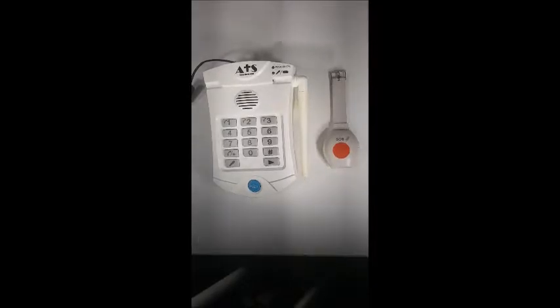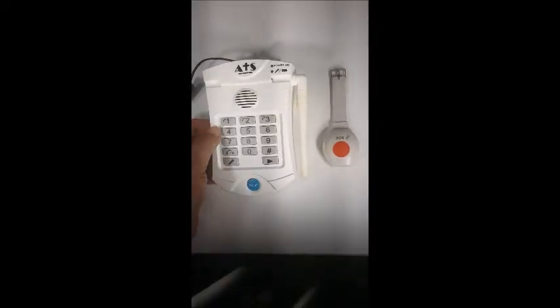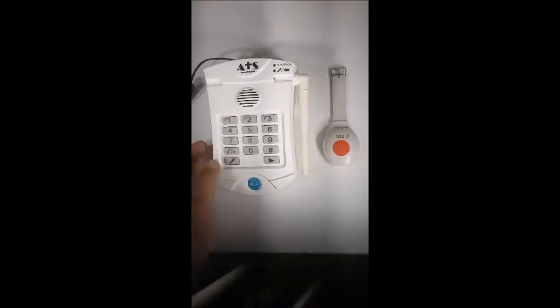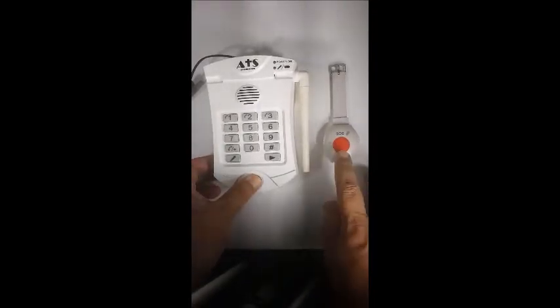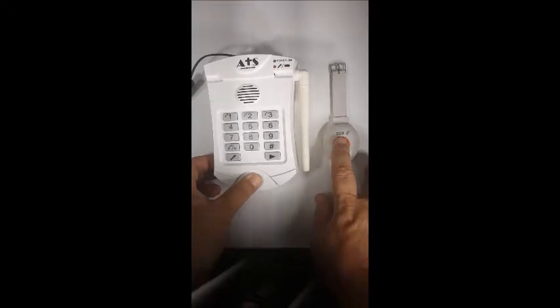The first step is to turn on the power switch. After you hear the beep, press the help button and hold that button, then reach over to your SOS button and press that until you hear a beep.